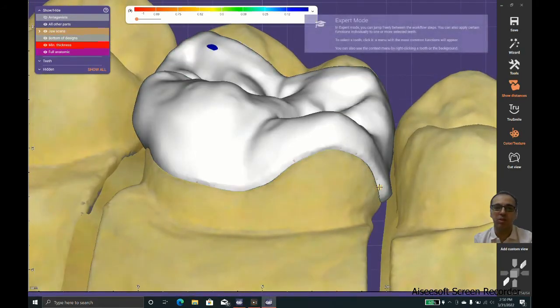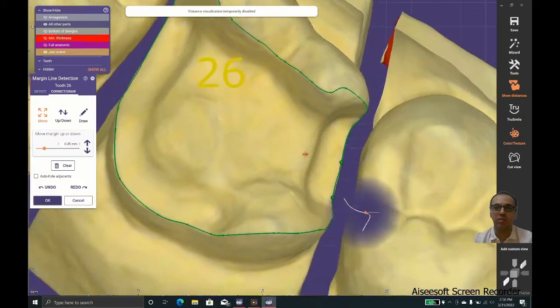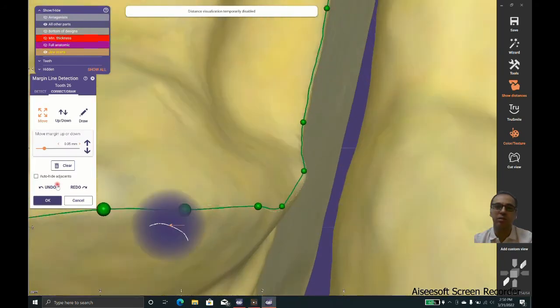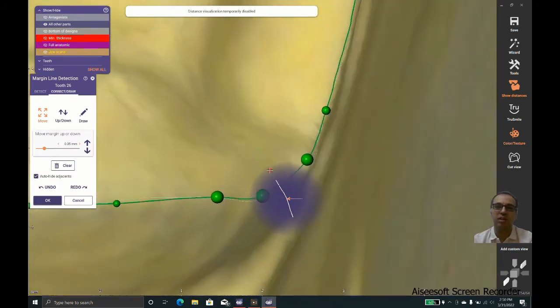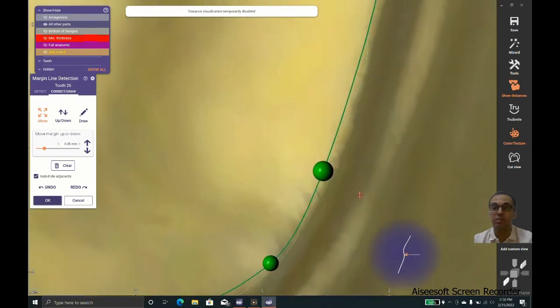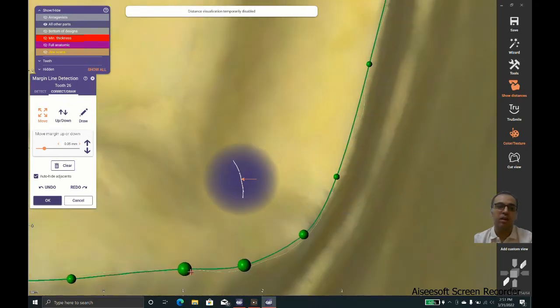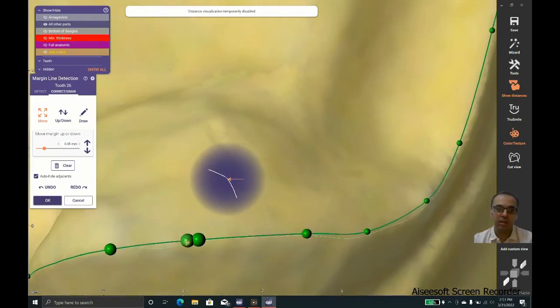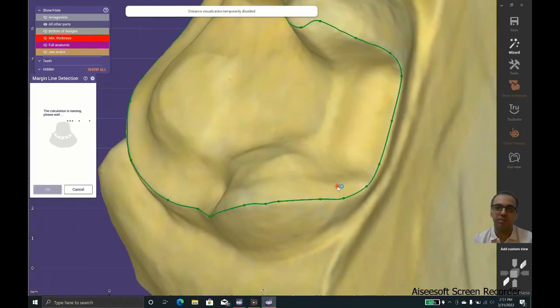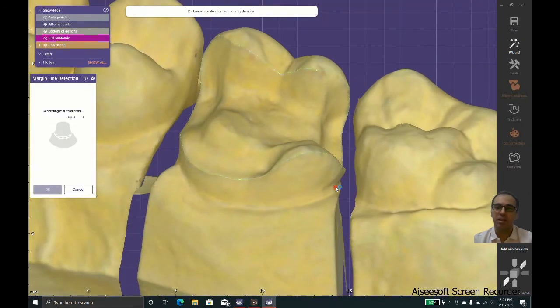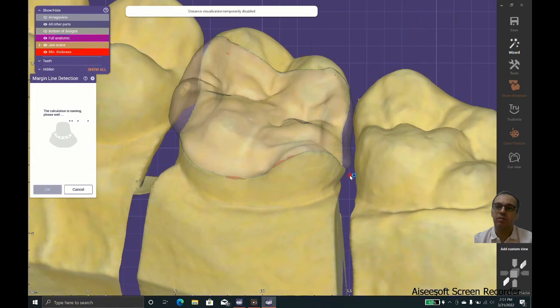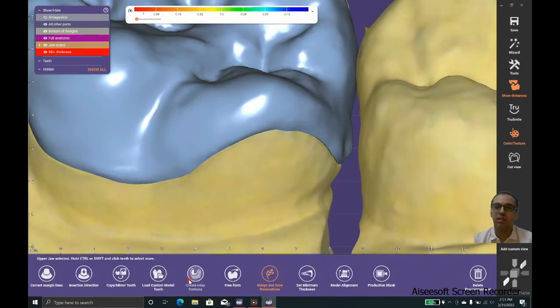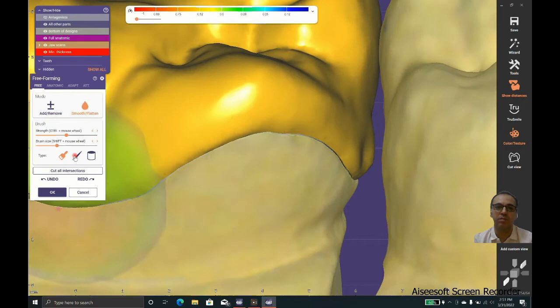I choose the correct margin correction, and as you can see, I bring the marginal ridge a little bit inside, not too much, a little bit. This helps the software to have space to form it better. Look, this is far better.